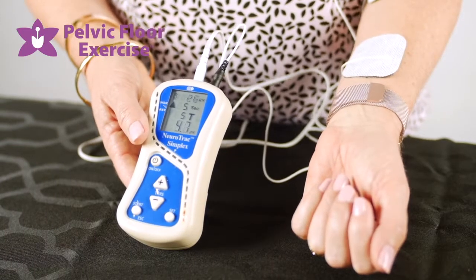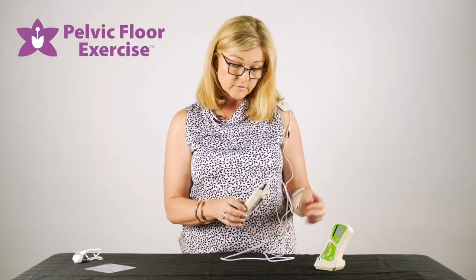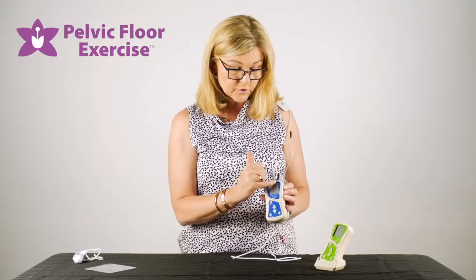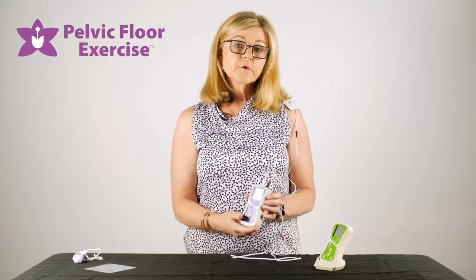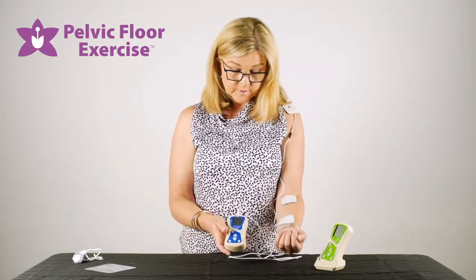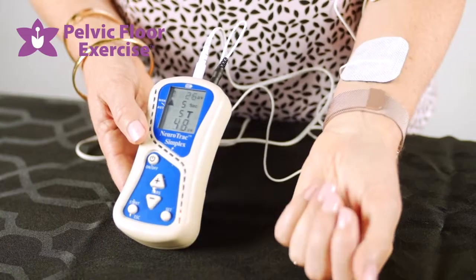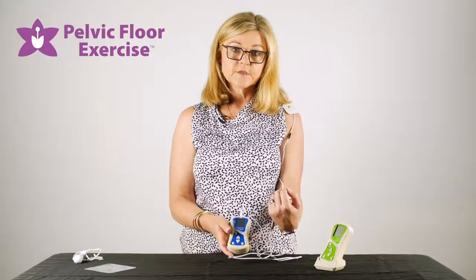What the machine will now calculate is 80% of that as my threshold, and it will set that as my threshold in the top right-hand corner. For my efforts with the EMG machine, I need to get past that threshold with my contractions if I'm going to be successful.